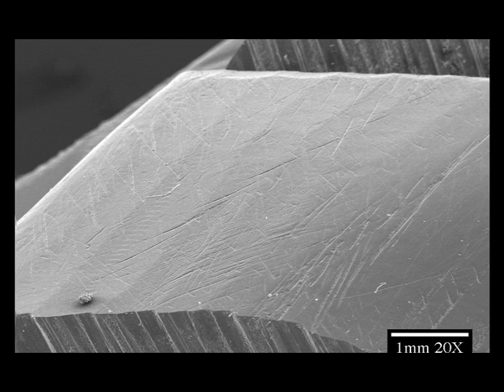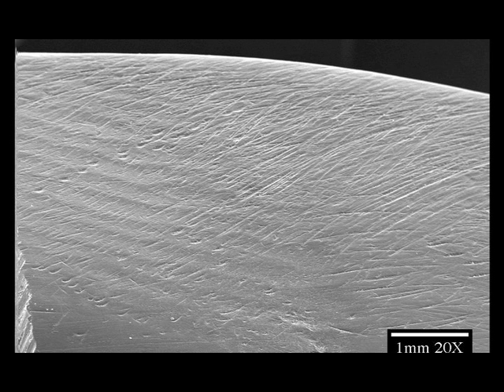Digitally produced splints have smooth functional surfaces, providing a skating rink effect that allows patients to freely contact the splint surface without being locked into place.